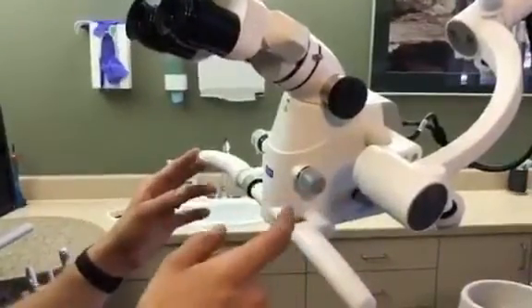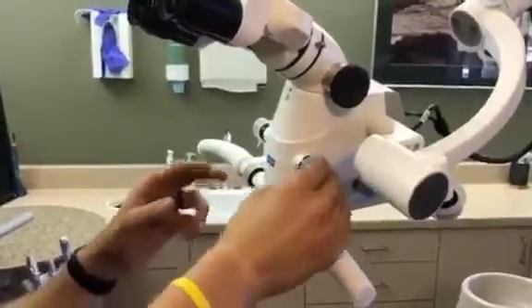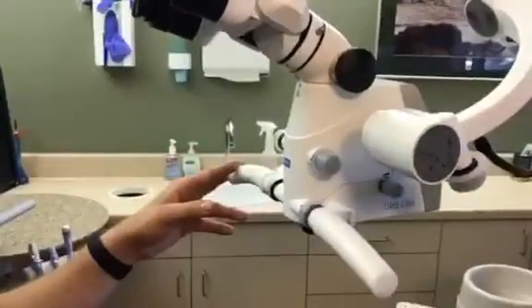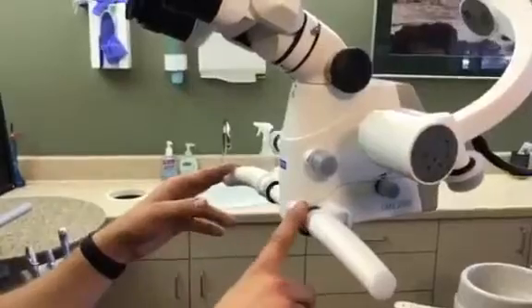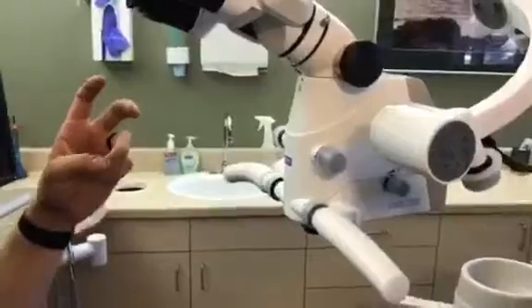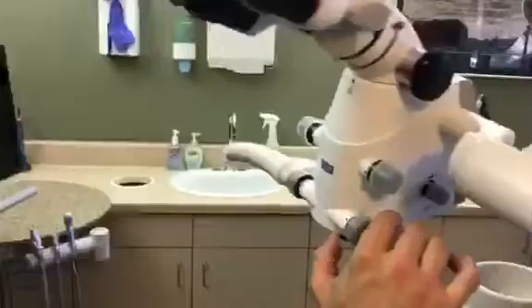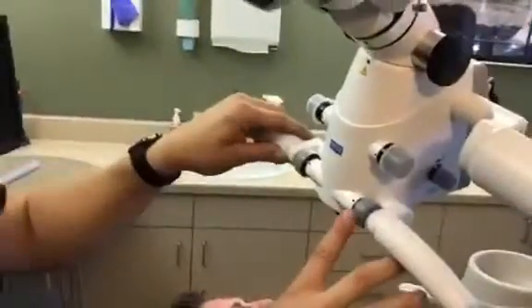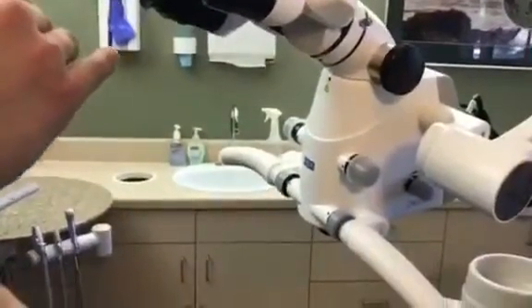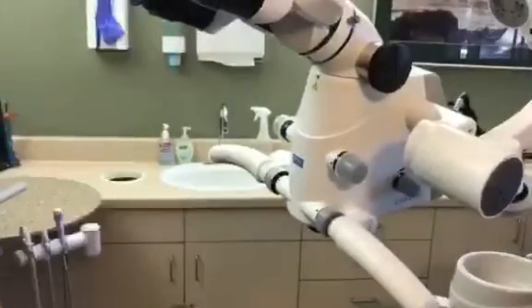This is your magnification — it's a zoom, not a step. You go from 2.5 power all the way up to 18.6. Then you have your fine focus — what they call a vario focus or your depth of field. If you're closest, 200 millimeters or 20 centimeters; you can go all the way to 45 centimeters away from your patient and still be in focus. It's fine focus, like a regular camera.